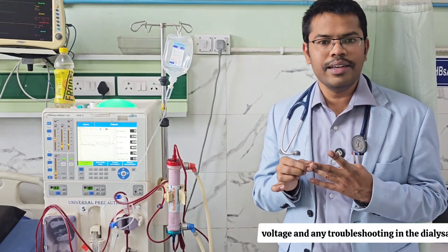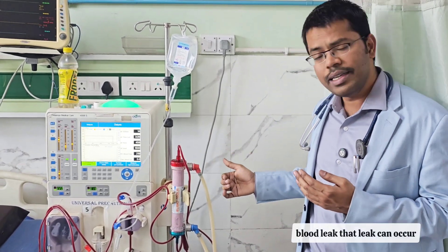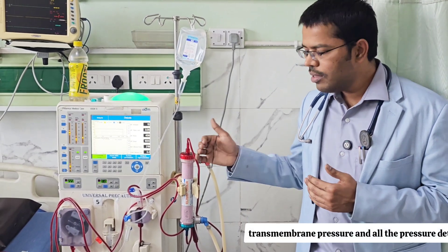To summarize: alarms in the dialysis machine are classified into four categories. Patient vital alarms include BP and pulse. General alarms include voltage issues and troubleshooting. Dialysate circuit alarms include conductivity, temperature, and blood leak. Blood circuit alarms include pressure, blood pump, heparin pump, air detector, and transmembrane pressure — with pressure monitors checking whether blood flow to and from the patient is adequate. This concludes the video.